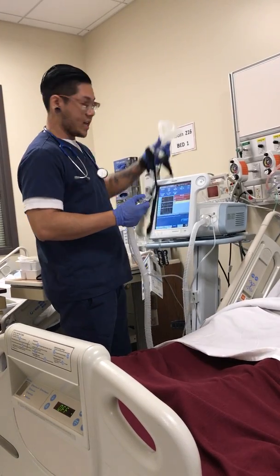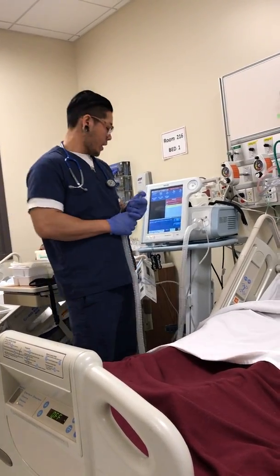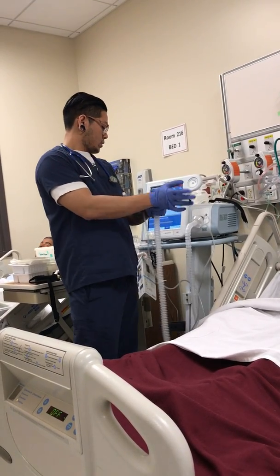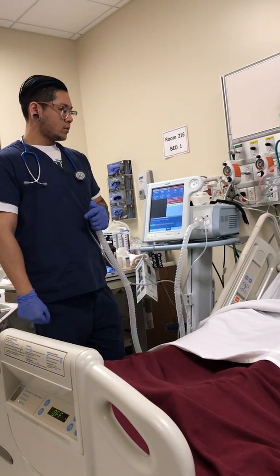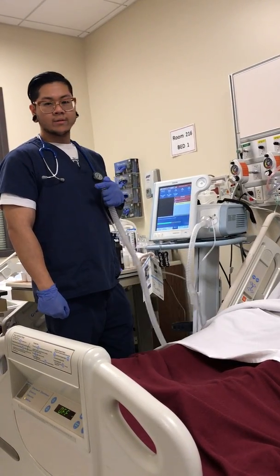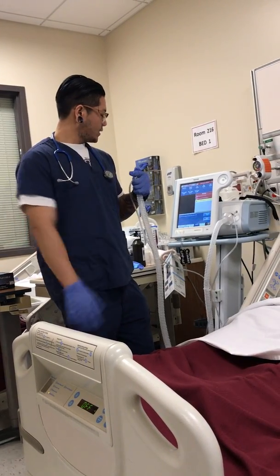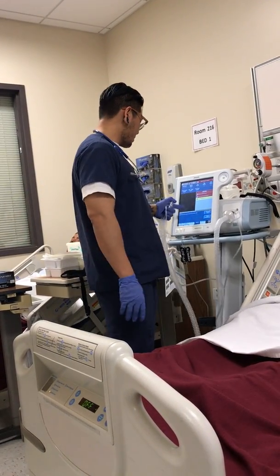After that, it's going to ask for a load test. It's going to check for leaks. So I'll close the hole and start the test. Okay, test is done. It says it's passed.